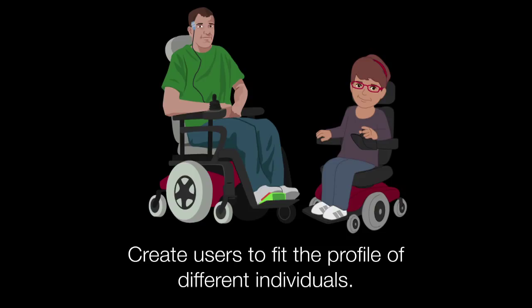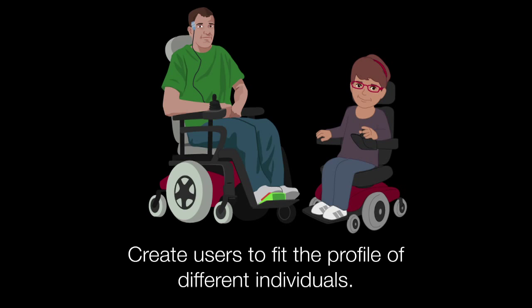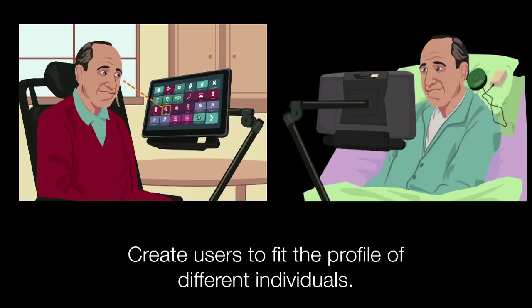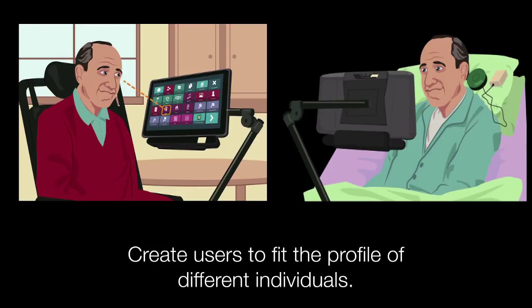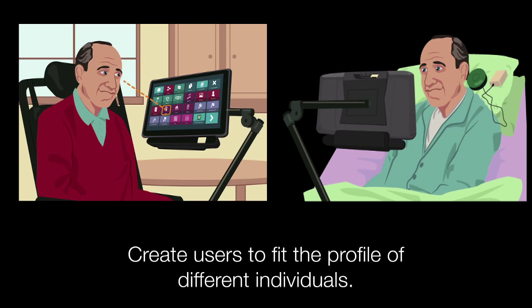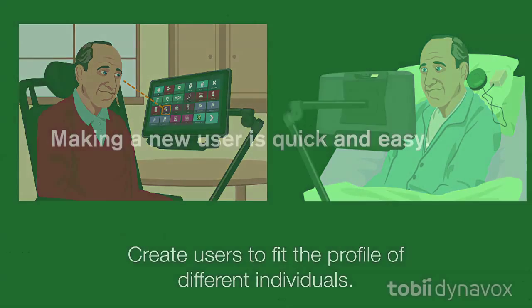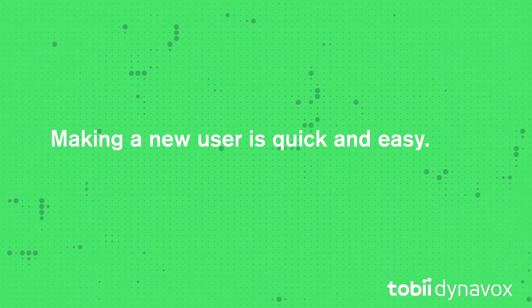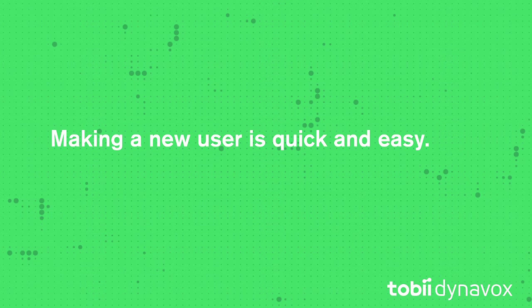For example, if you work in an evaluation center, you may want to create new users to fit the profiles of the different individuals that you will be assessing. You might also want to create multiple users for one specific individual to meet their specific access needs as the day progresses. Or you might just want to have access to a fresh clean user.